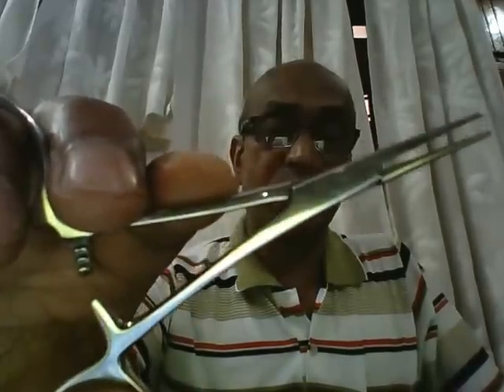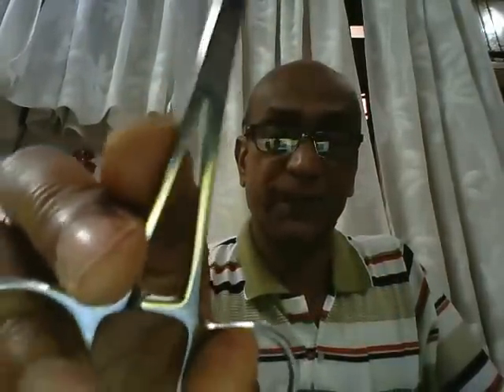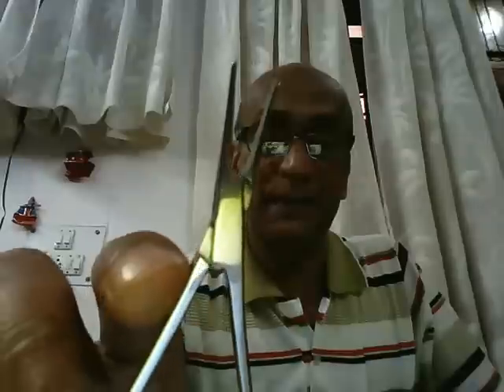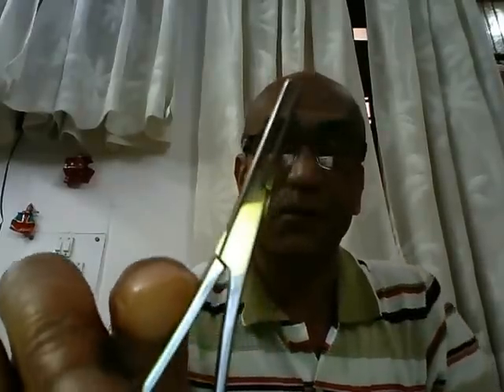What are the components of an artery forcep? First, we have two ring handles — the ring finger goes through the lower ring and the thumb goes through the upper ring. Then we have the ratchet catch, which has three clicks depending on how much pressure we want to apply. Then we have the joint — a box type of joint, where one limb goes through the other, giving less chance of slipping or breaking.